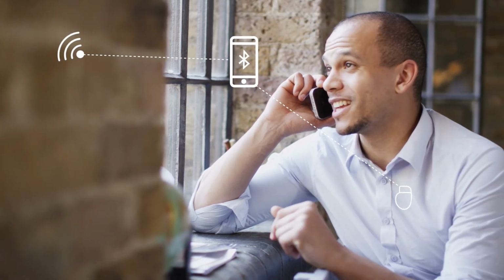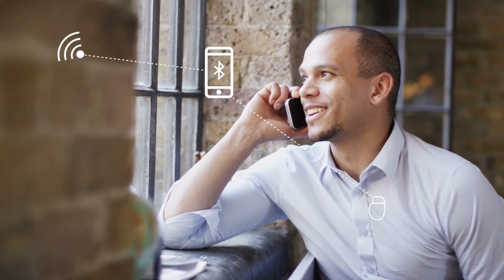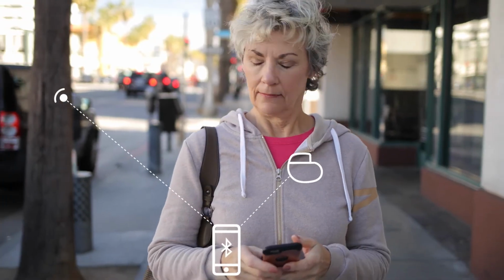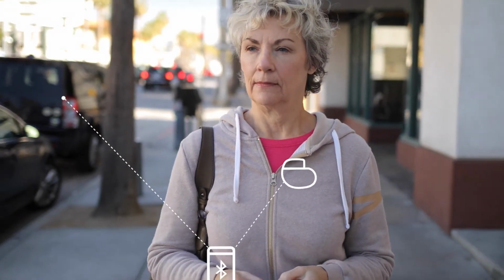The MyCareLink Heart mobile app is designed to give you greater freedom, convenience, and peace of mind. Continue with your daily life knowing that your heart device is connected to your clinic wherever you go.